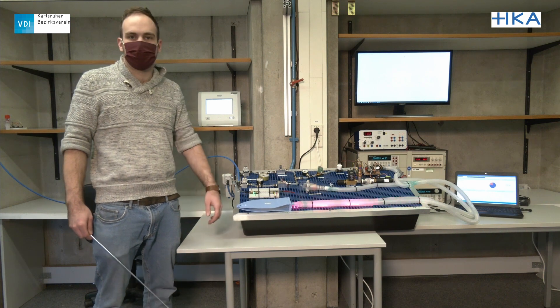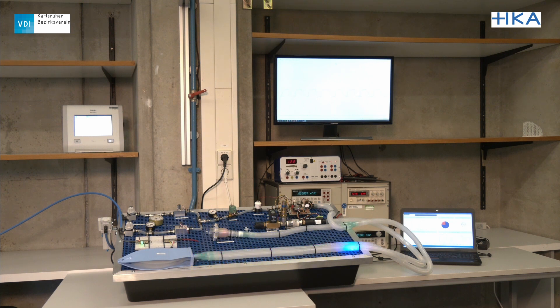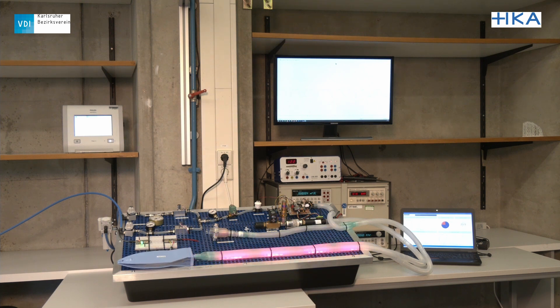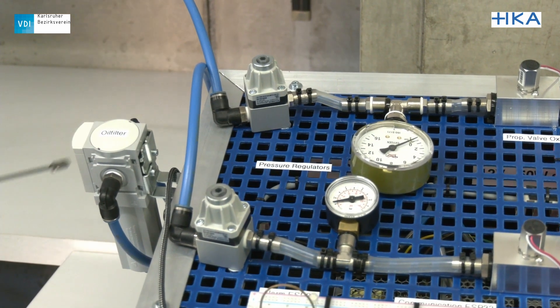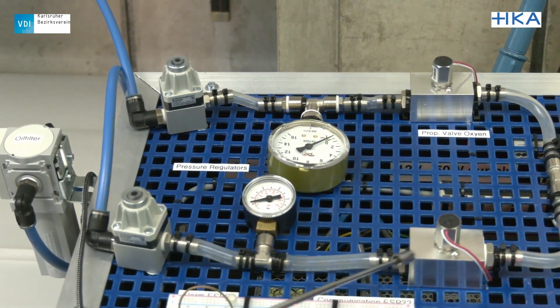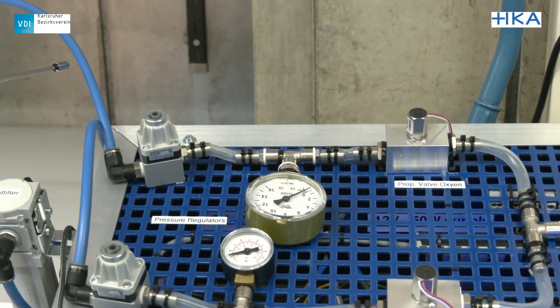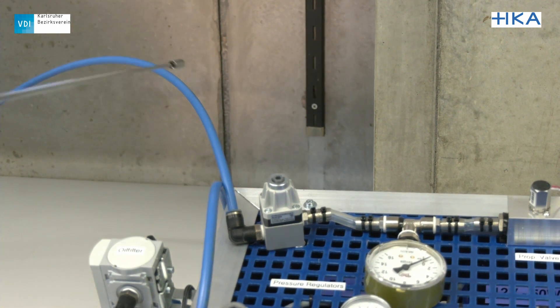Hello everybody. I would like to give you a quick overview of our Corona Ventilator Prototype Version 2. Starting with the mixing chamber. In order to realize different oxygen concentrations in the inhalation air, a controlled mixing chamber is required. In the lower line, compressed air is supplied via an oil separator, which is then reduced to the desired pressure by a pressure regulator. In the upper line, pure oxygen is supplied from a gas cylinder, and also gets reduced to the desired pressure by a pre-pressure independent pressure regulator.